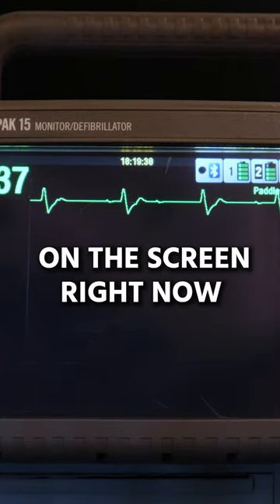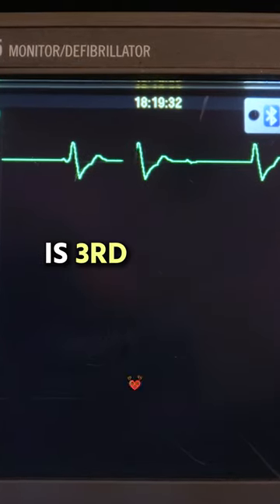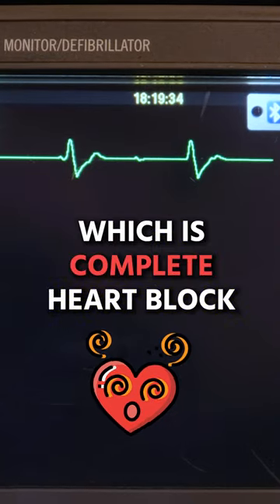What you're watching on the screen right now developing is third-degree heart block, which is complete heart block.